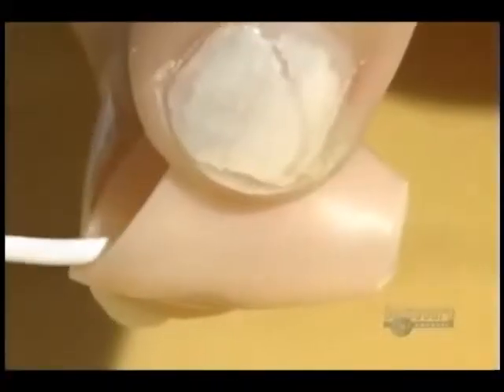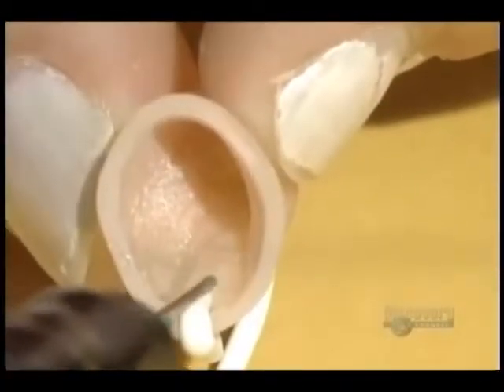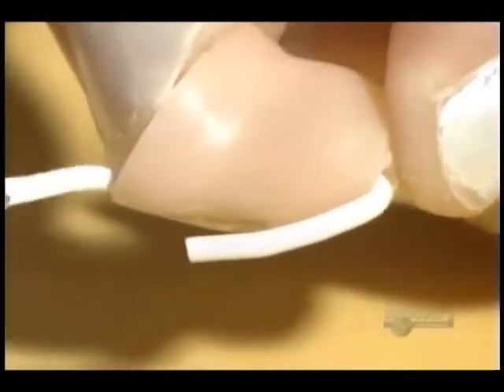The holes visible here are used to vent air from the earphone. A silicone tube is used to make the vent — acrylic is poured onto the tube to form a tunnel, and ultraviolet light is used to harden the acrylic. Afterwards, the tube is removed.